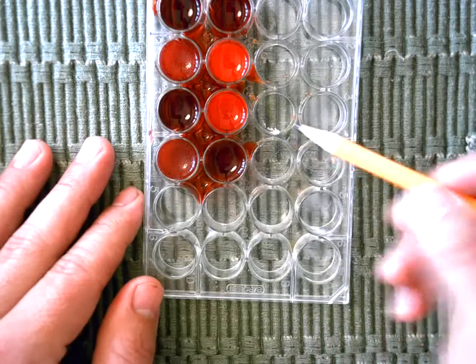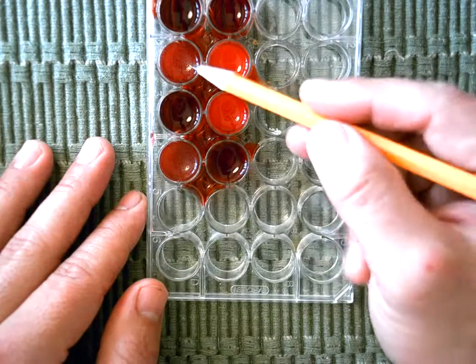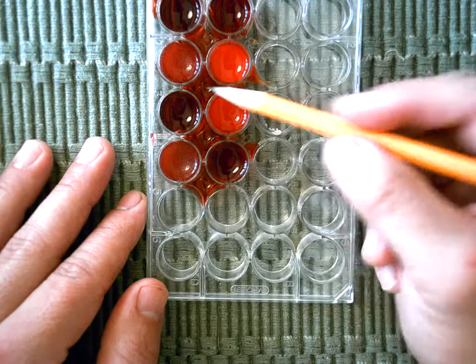It looked like Alton Sarnay's blood was the exact opposite. It clumped with antibody A and it clumped with antibody B.